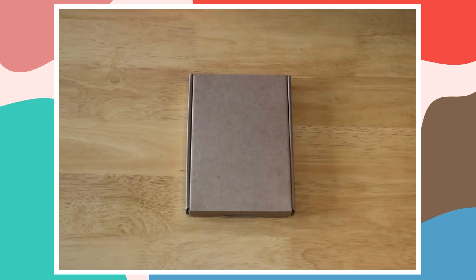This is our combined worm count kit and lung worm kit, and today we're going to show you how to take your samples.